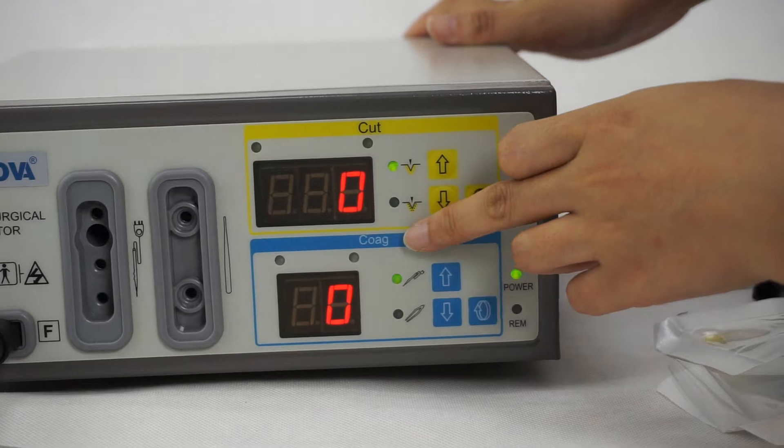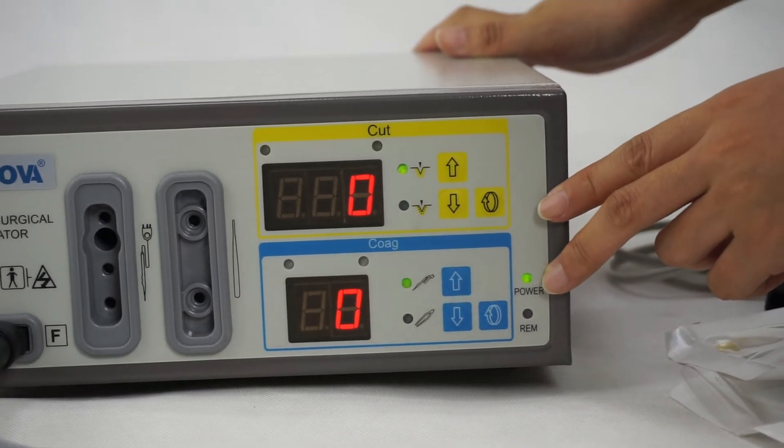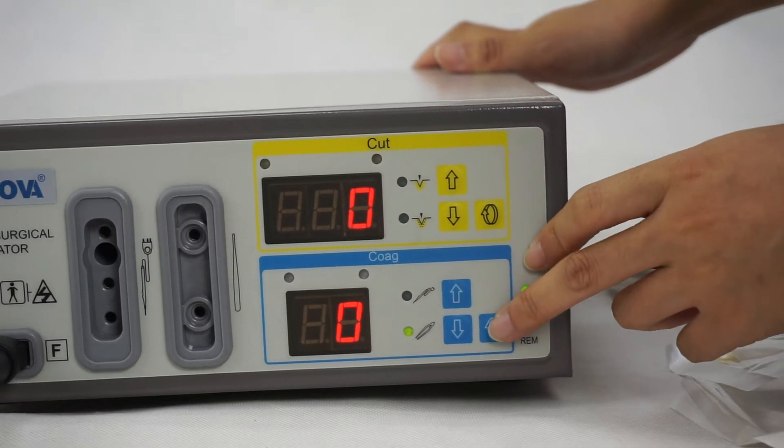The following is the coagulation section. The operation is similar to the cutting.